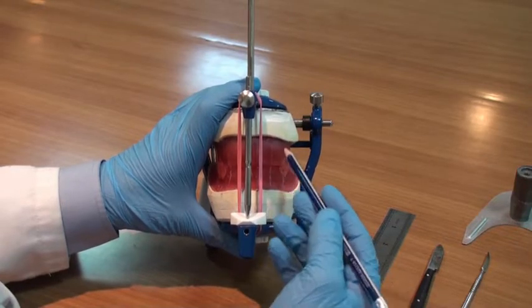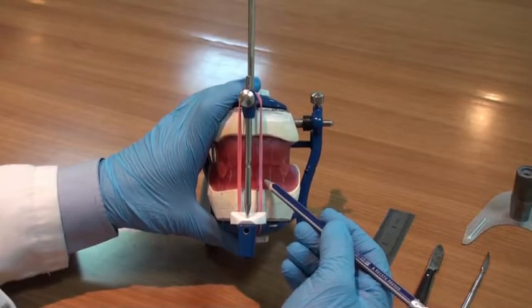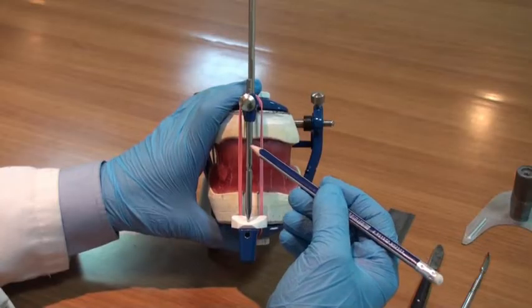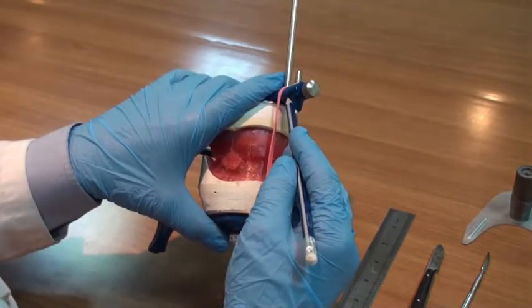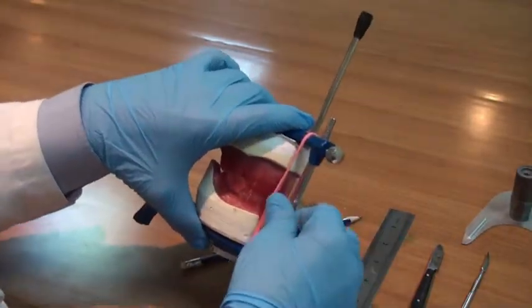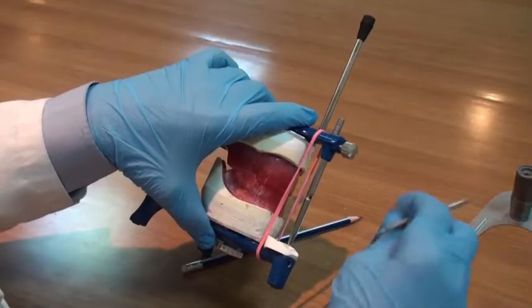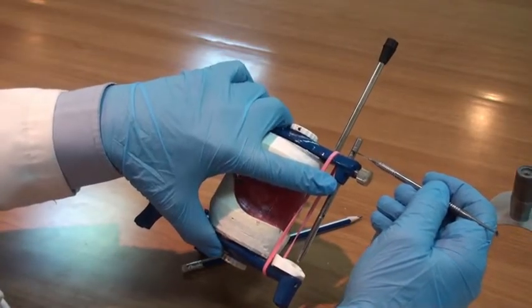At the articulator, this vertical relation is preserved and protected by the incisal pin. The incisal pin is a graduated rod with the zero line in the center. We can notice here that the zero line is a deep and clear line.